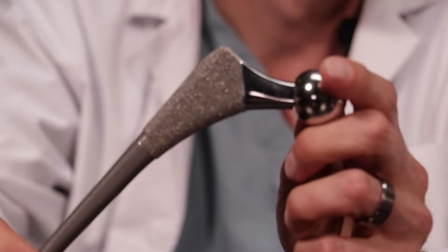The stem is shaped very specifically, not only to stop it from going further distally towards your knee, but also to prevent rotation. A lot of people ask if it's made out of titanium, and often it is. We want it to be made out of titanium because it's inside your bone — we want its modulus of elasticity, or its ability to bend, to be similar to bone. If it's too soft or too hard, it could cause the bone to break. The design tries to get the stiffness closer to bone, though it is still much stiffer than bone.